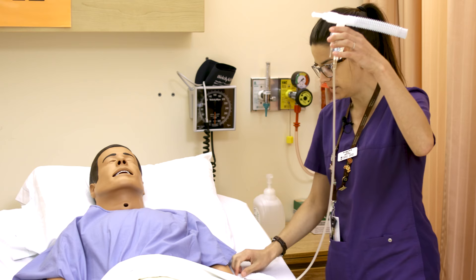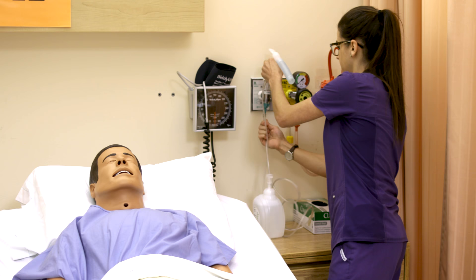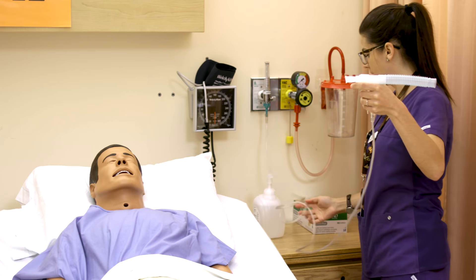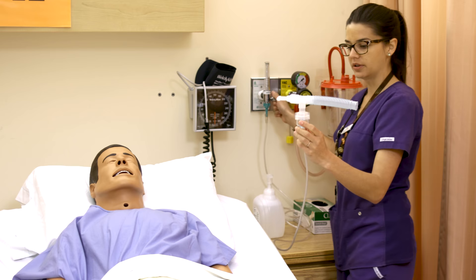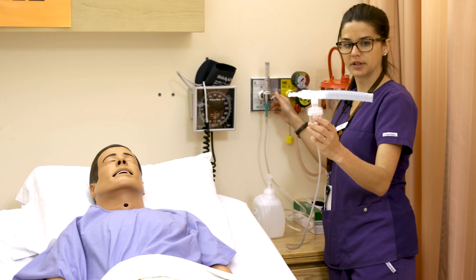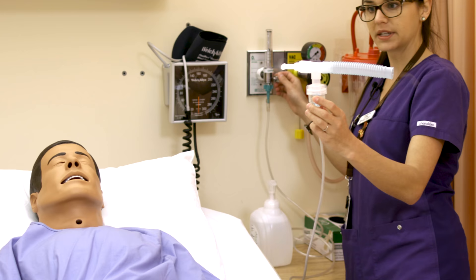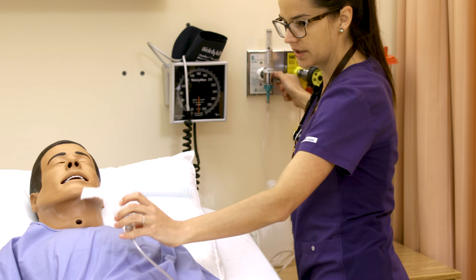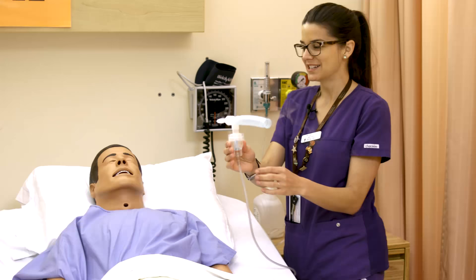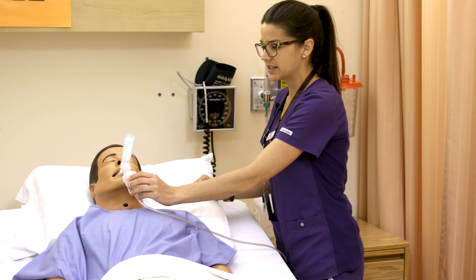The oxygen tubing connects to the bottom of the nebulizer device, and the other portion connects to the wall adapter. When setting this up, the flow rate needed to aerosolize the medication is based on how much oxygen it takes to produce a visible mist — usually somewhere between six and ten liters per minute. We'll turn it on at six; it helps to hold it up to something darker so you can see the mist. We have it misting at about six to seven liters per minute of oxygen.